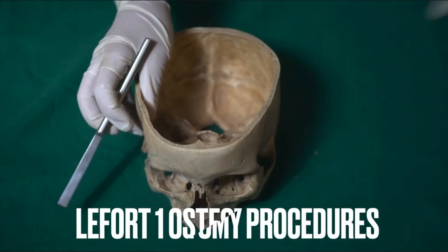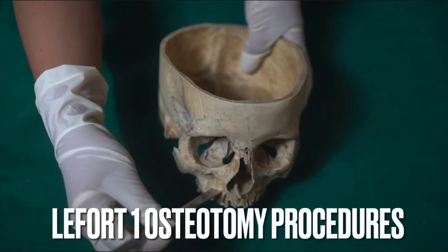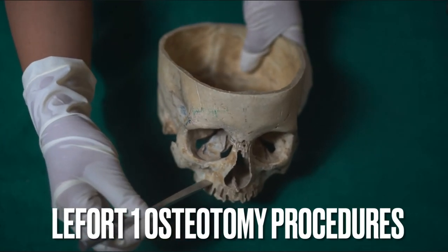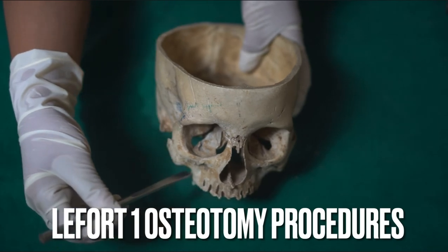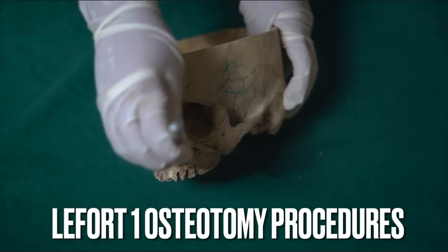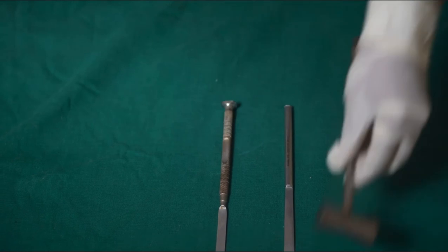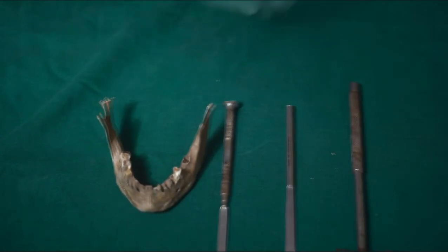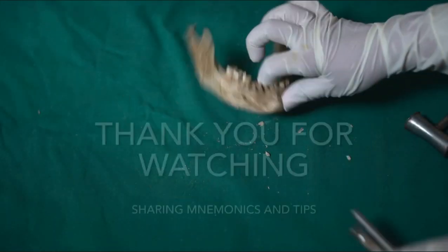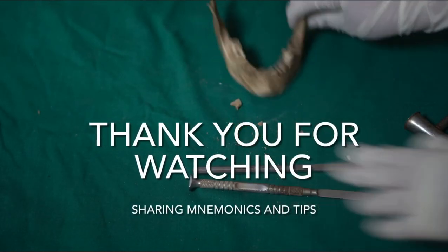The osteotome is mostly used in major surgical procedures. For example, in Le Fort I osteotomy, we split the bone approximately 4 to 5 mm above the apices of the canine to first molar region. It is also used in other procedures such as recontouring of bone in large bony lesions, biopsy, ankylosis, and many more. For the chisel, the biggest example of its use is the lingual split technique.